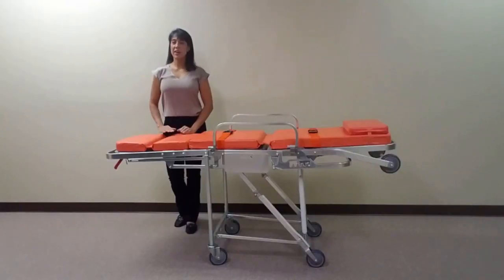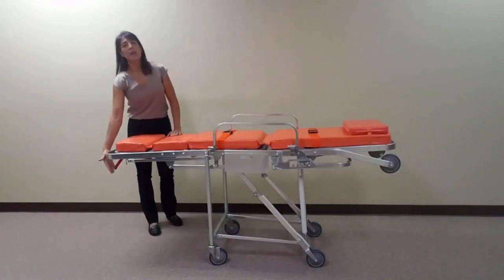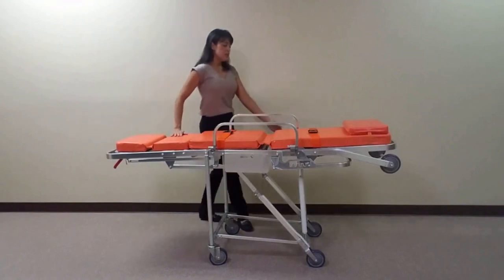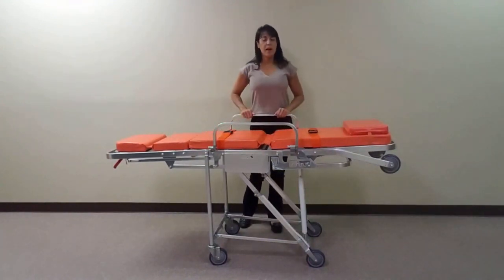The MS3C1000 is designed for a one person operation when loading into a transportation vehicle. To load this unit, squeeze the red lever located at the foot end of the stretcher. Once the front end legs come into contact with the loading platform, the legs will automatically collapse.